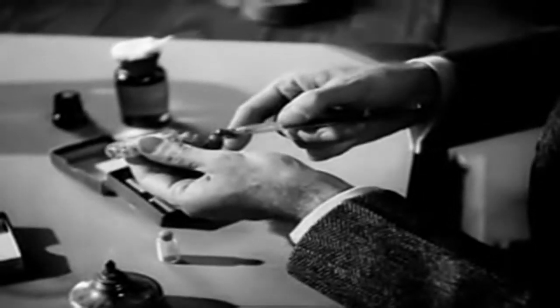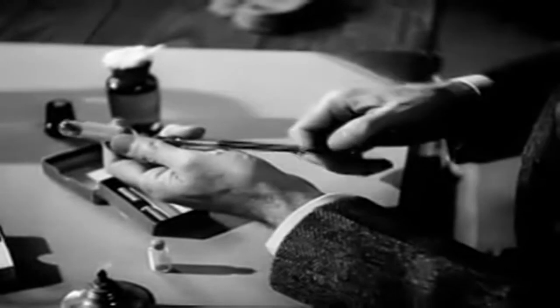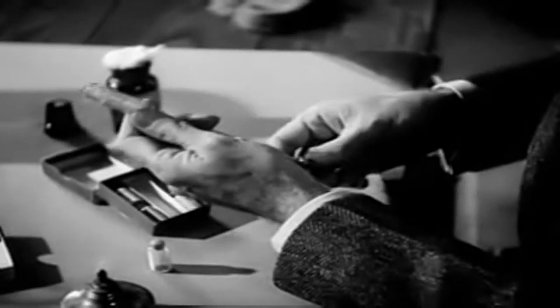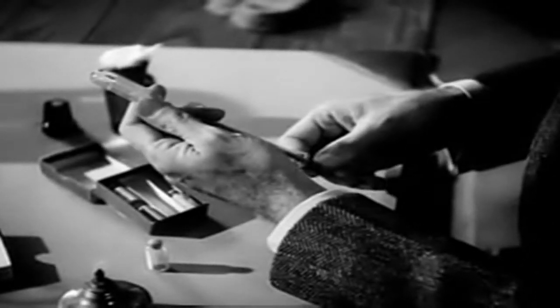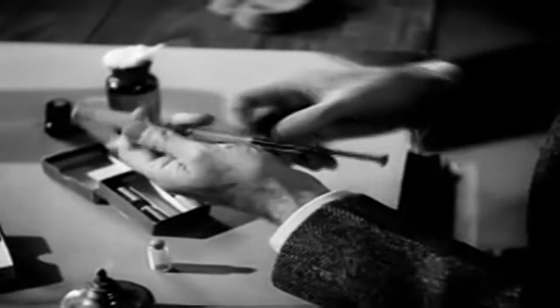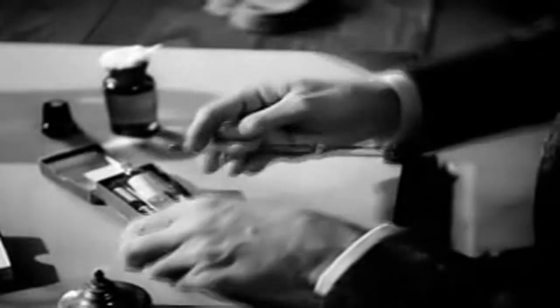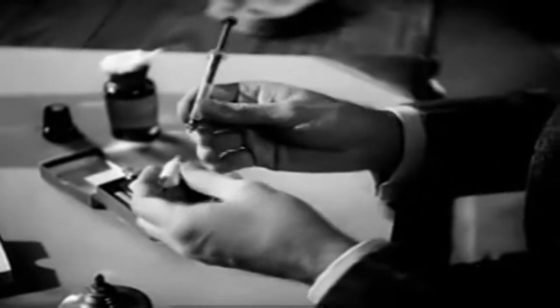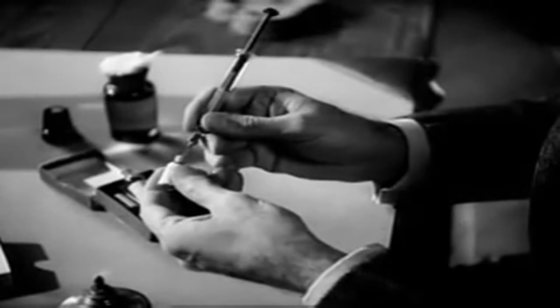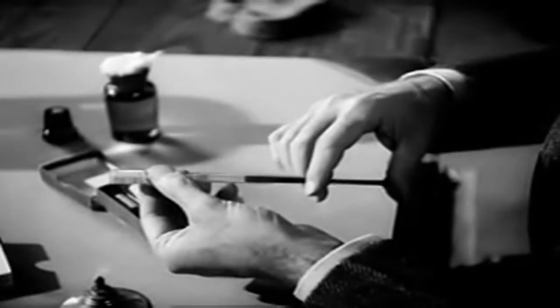Draw the sterile buffered saline solution into the syringe. And transfer it with aseptic precautions to the bottle containing the tablet.